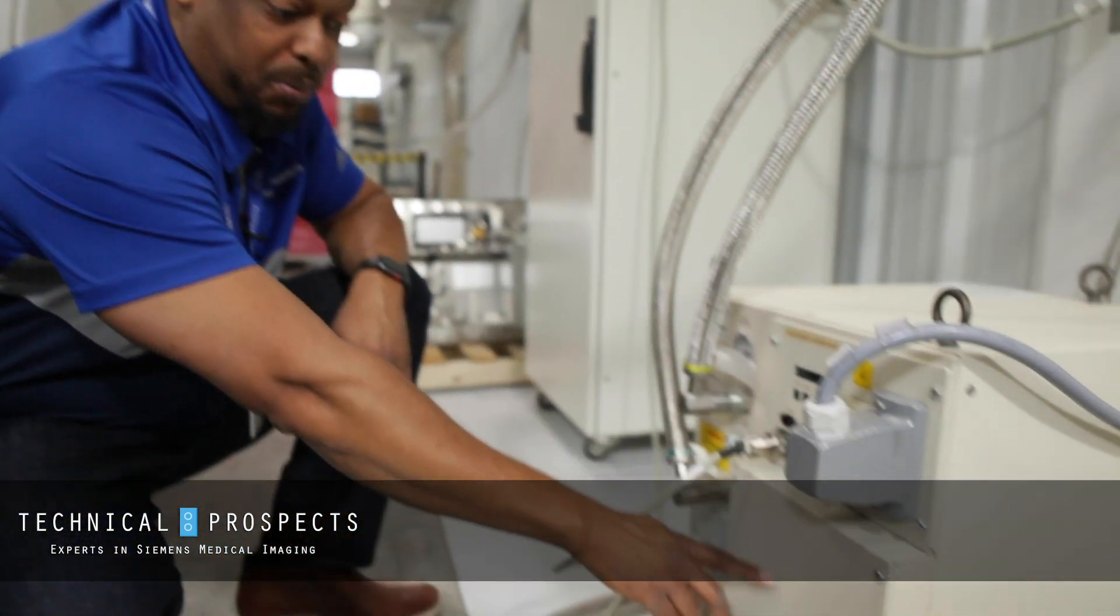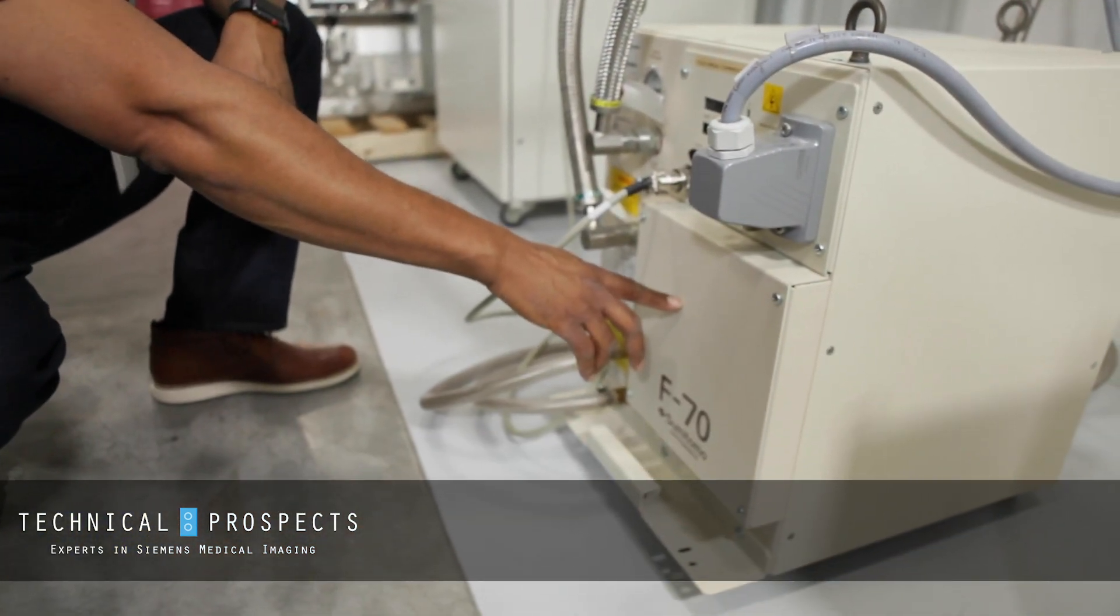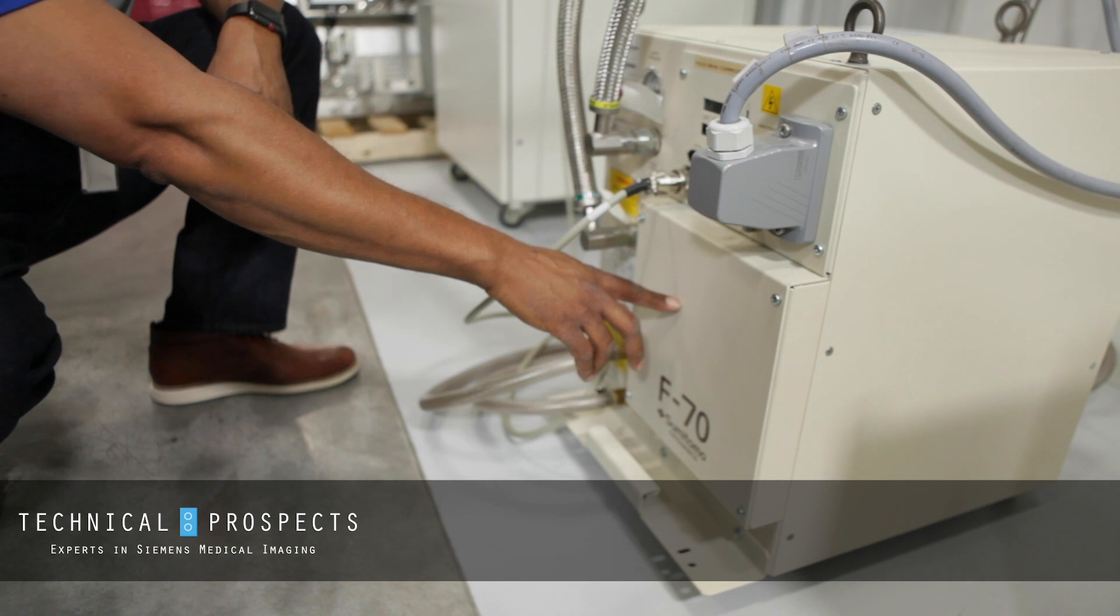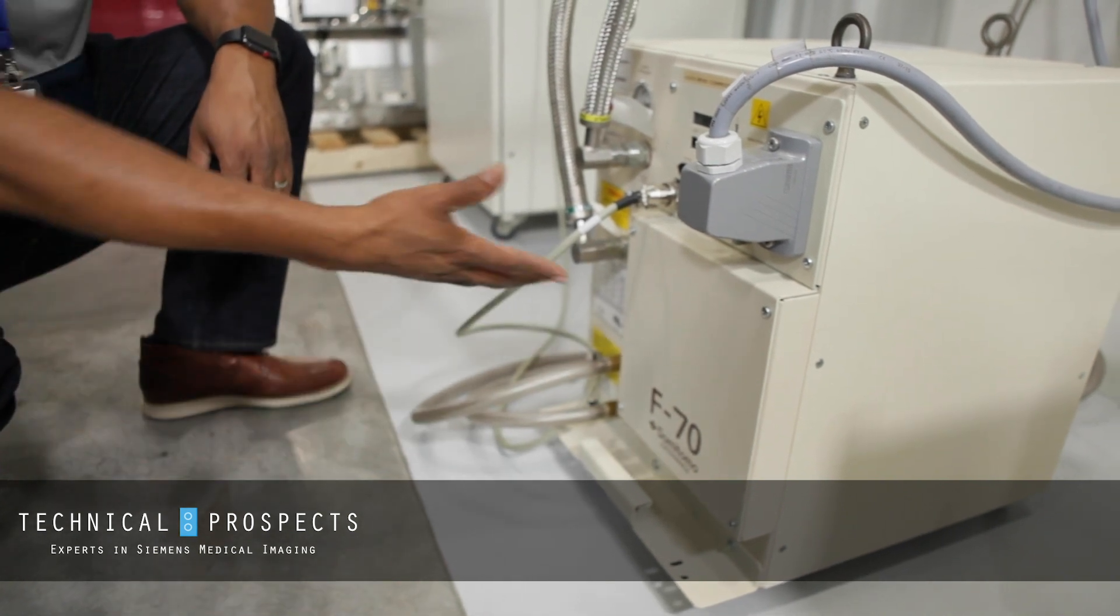Here we have an F70 compressor. It's for your MRI system to keep your liquid helium cold, and so we must maintain it.